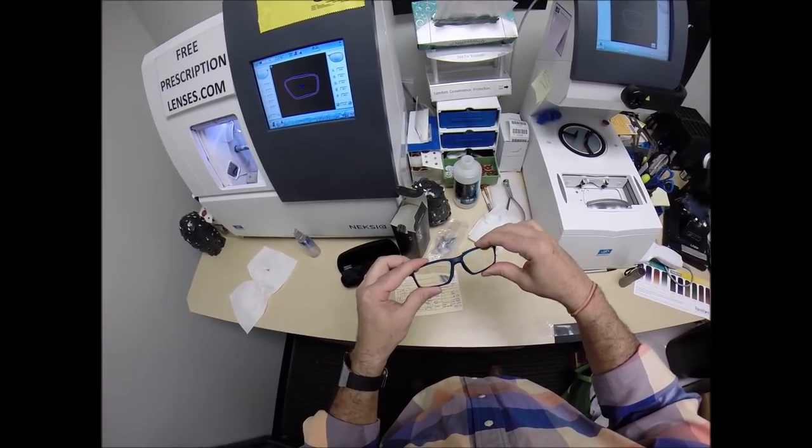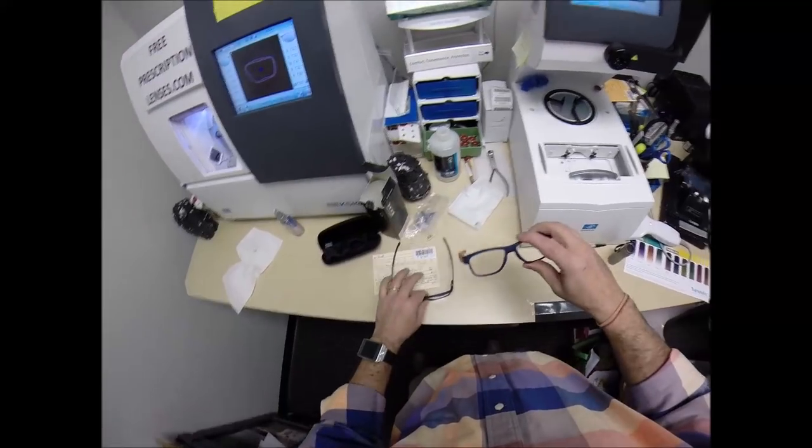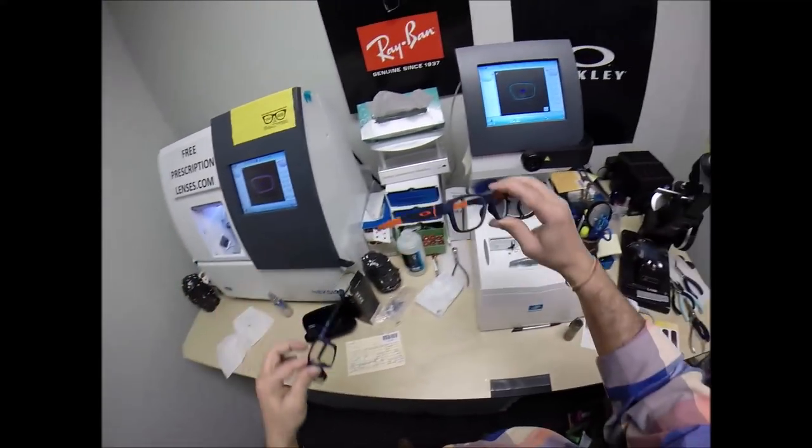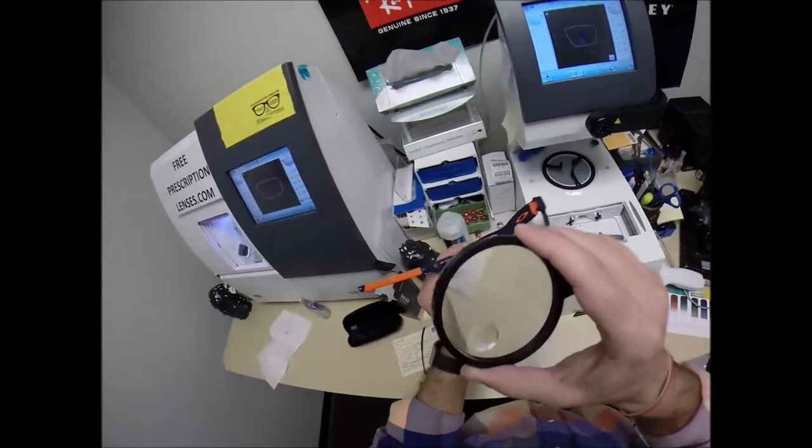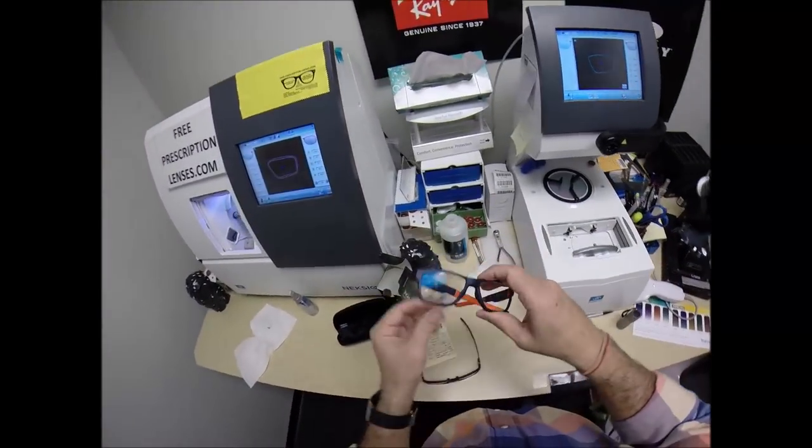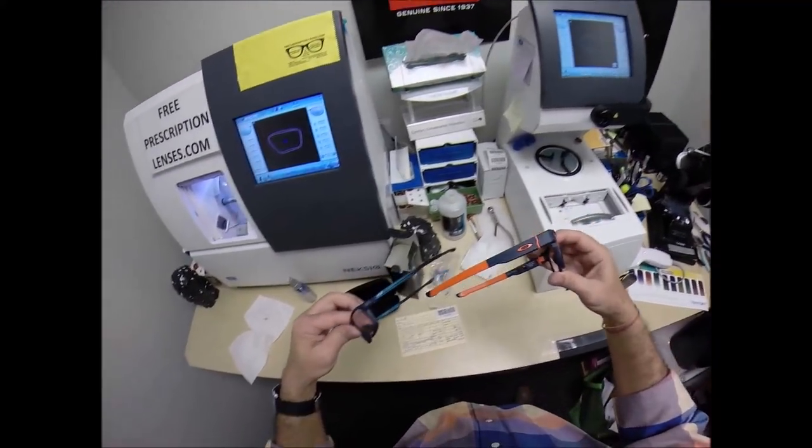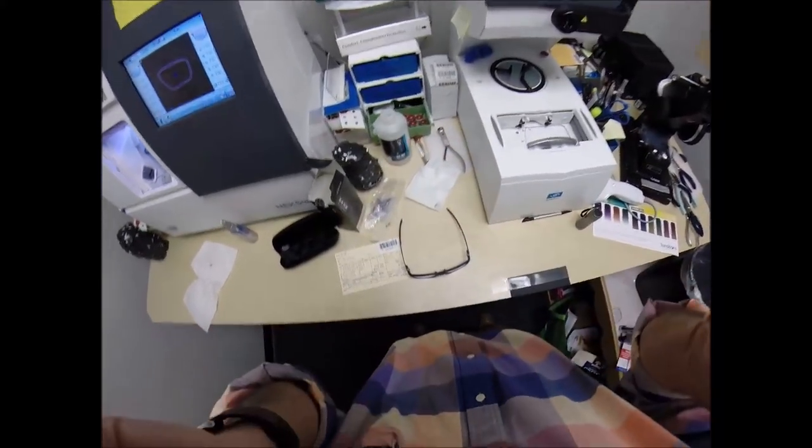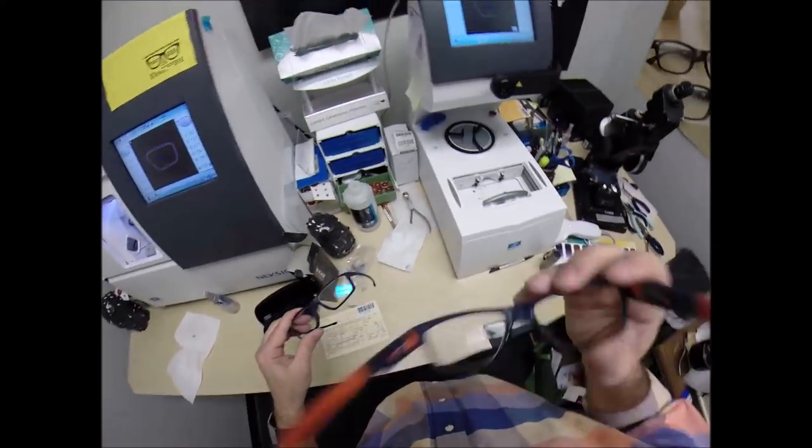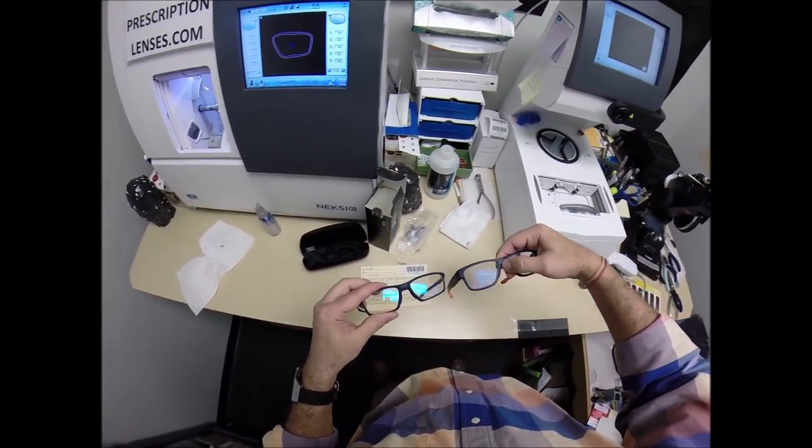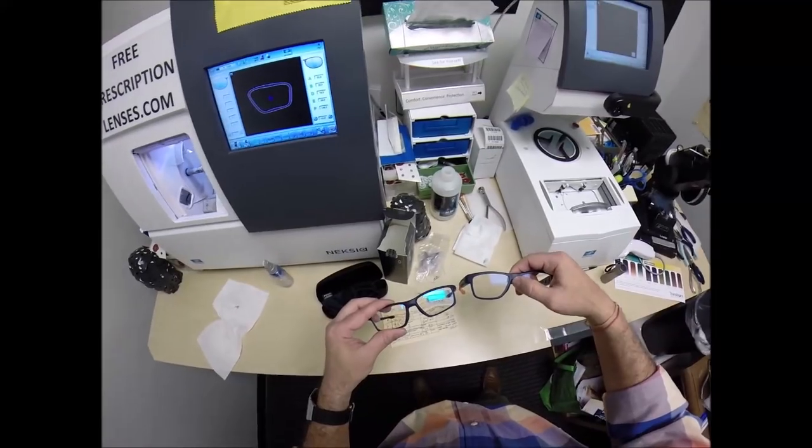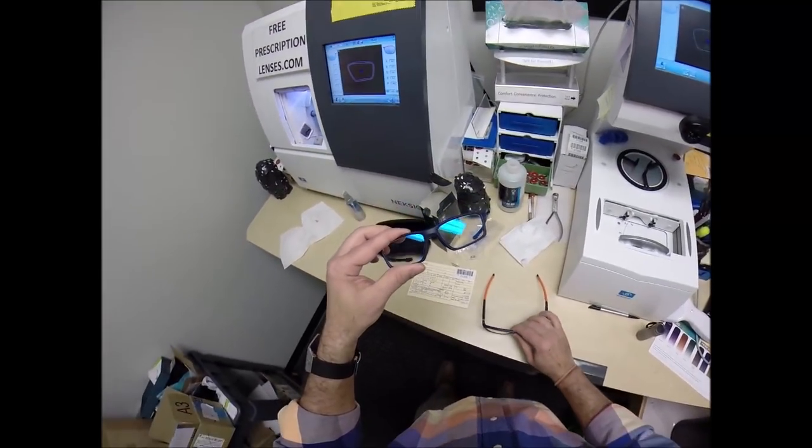That's what your lenses look like clear. Now, the blue flash mirror looks like a blue anti-glare on steroids. I have Crizal sapphire in mine. I'm wearing the Oakley 8132 cross range switch in color 02. He's got color 05. I've got 02 universe blue. Our fronts are about the same, but I've got the orange on the side to go with my blue orange. The flash mirror is just a more pronounced version of that.